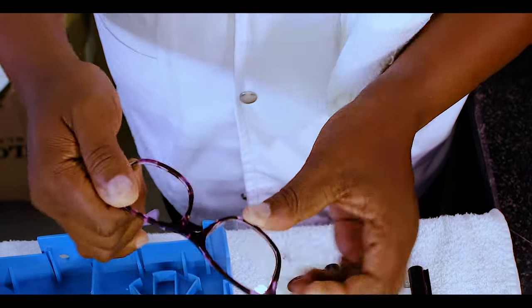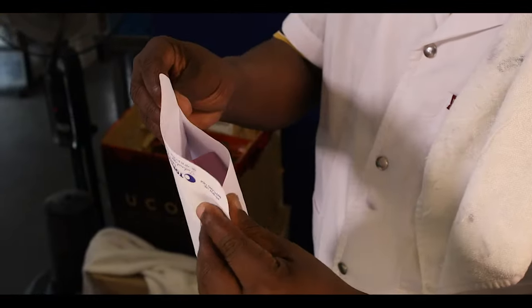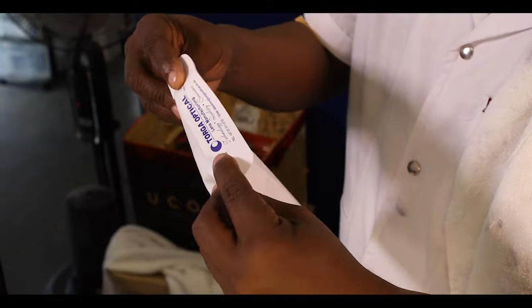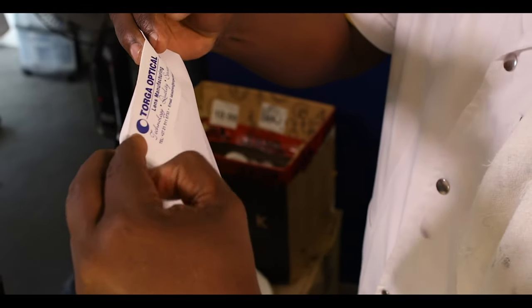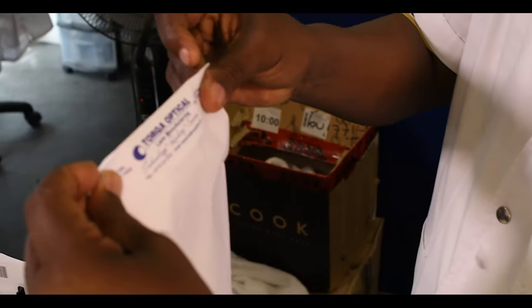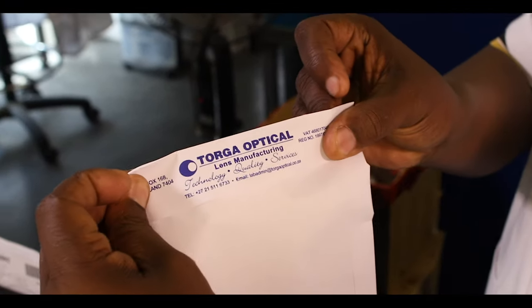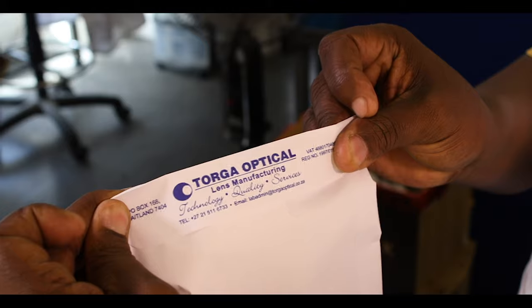Finally, the finished eyeglasses are thoroughly cleaned and packaged for delivery to the patient at one of our 120 branches nationwide.